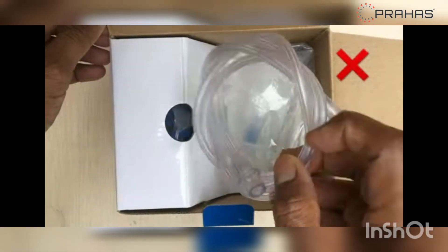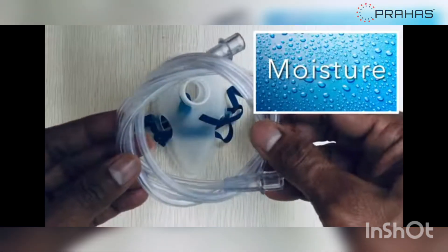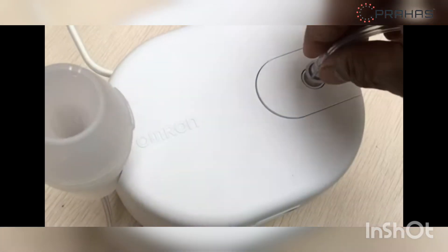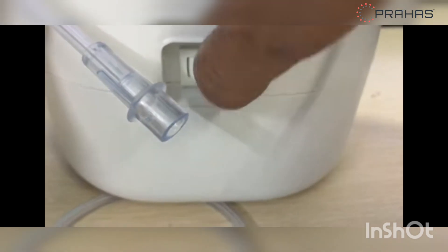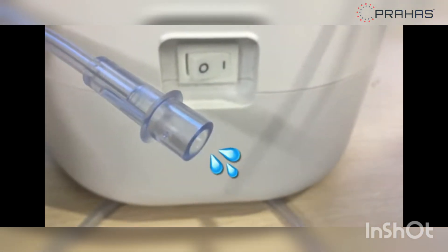Never use these cleaning methods to clean the air tube. If you find moisture inside the tube then connect to compressor and switch on so device pumps air to expel moisture.